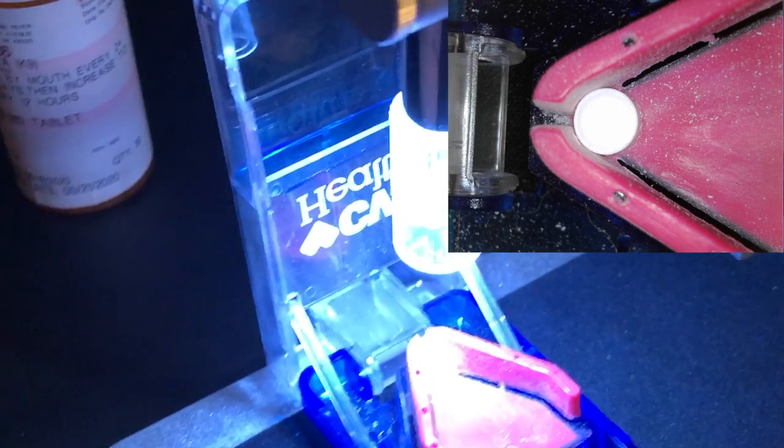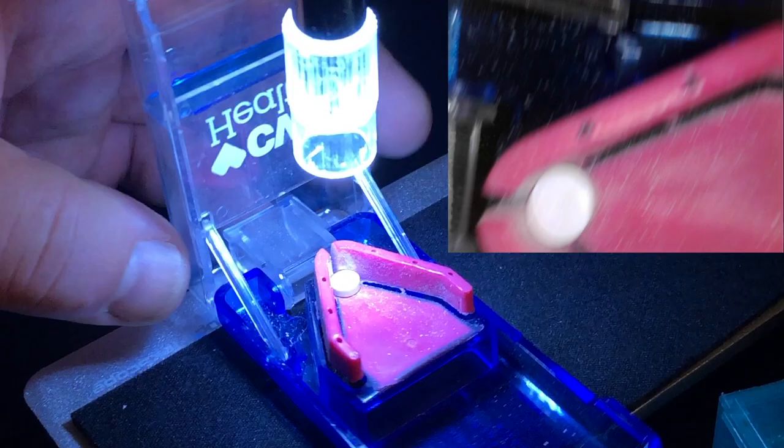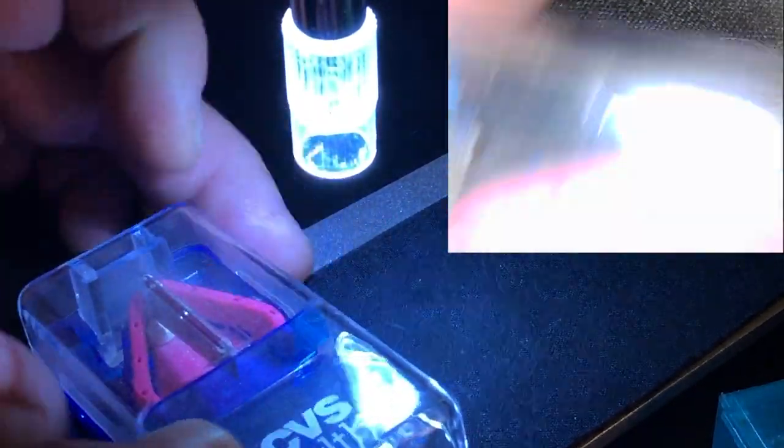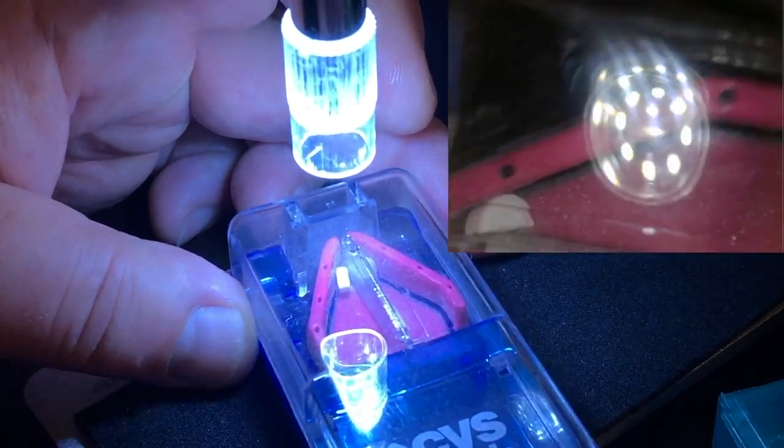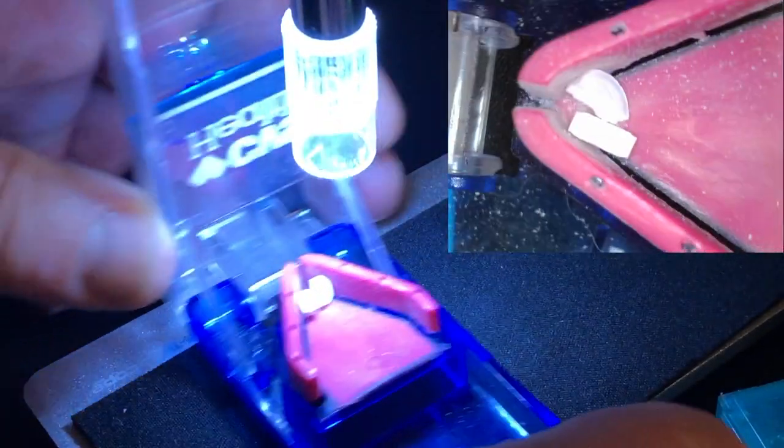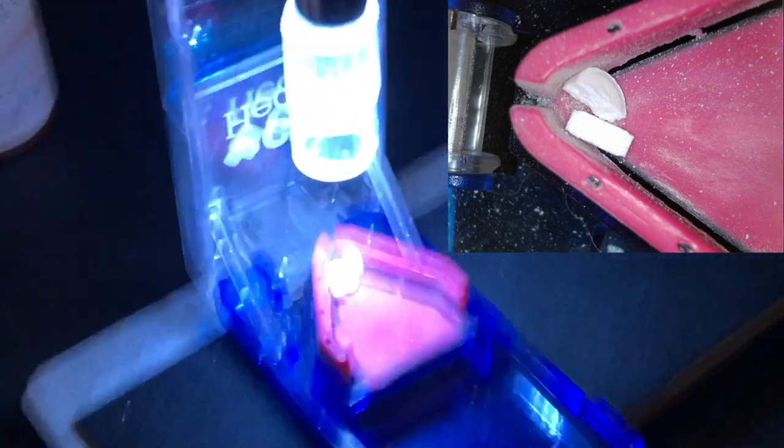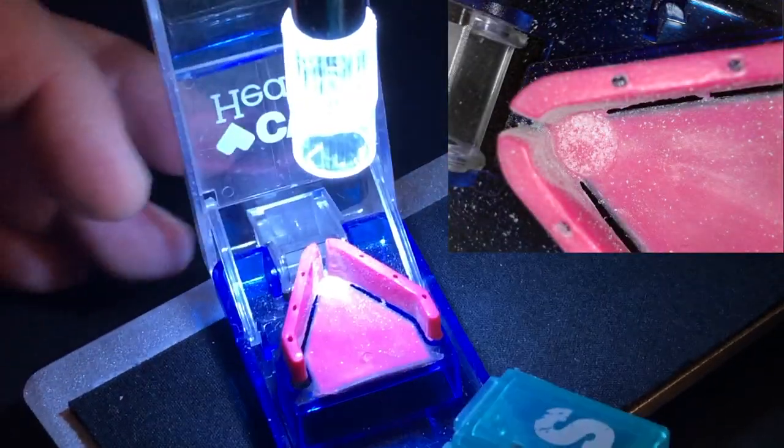I'm going to do the whole week here for my patient. Let's show this. I want to see if I can show this when I cut here. There it goes. Two halves. Very nice. This will be our Sunday. Monday? Tuesday? Tuesday it is.